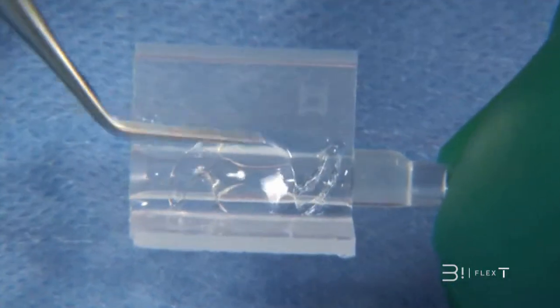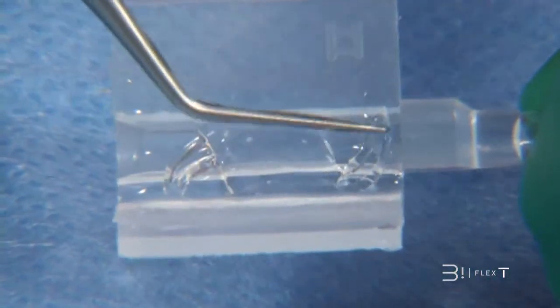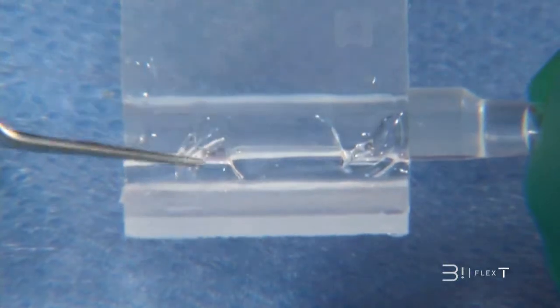Be aware, first of all, that the biflex IOL should be preloaded in a Z configuration into the cartridge to ensure correct orientation while entering the capsular bag.